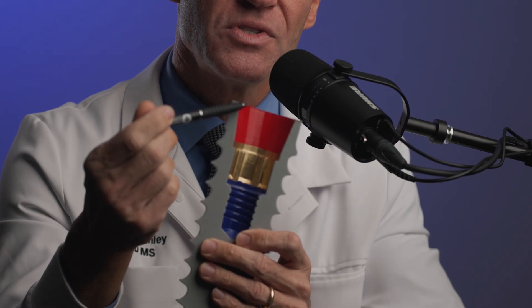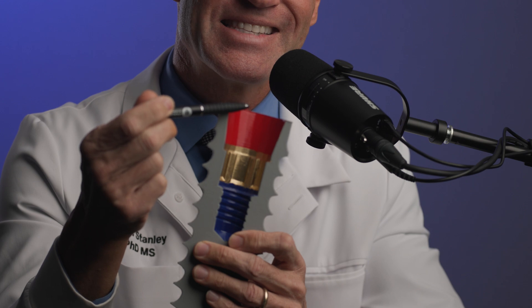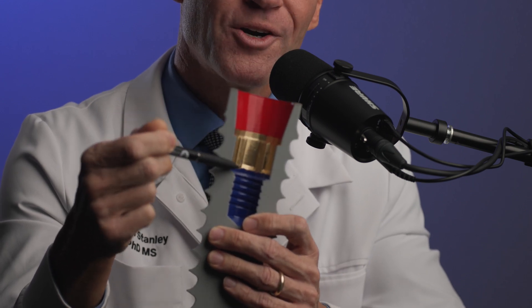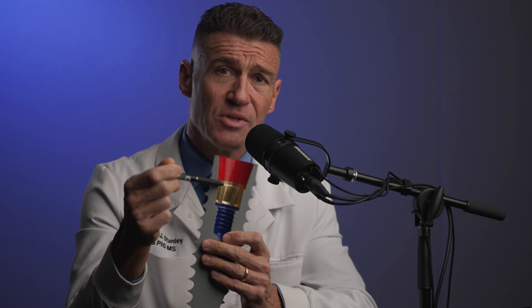They recently came out with their deep conical seal. With the deep conical seal, do you see how much more red is here? That's the deeper conical seal part. The gold part here is cams. So instead of having a hex for the indexing, they have cams that slide together — they do the exact same thing.